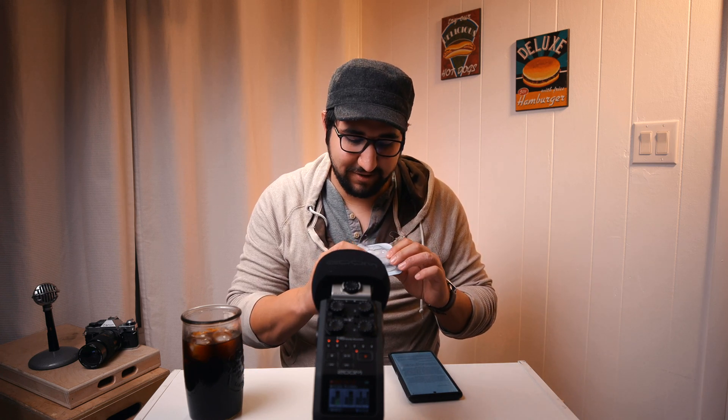Not sure if that was exactly 25 seconds — there were some edits because, oh my word, that's hard to read. Now, typically a pod lasts about three days plus eight hours, which is definitely a lot better than trying to do five or six injections every single day. This really is very interesting technology, especially for diabetics, because it's pretty small — it's not that large.